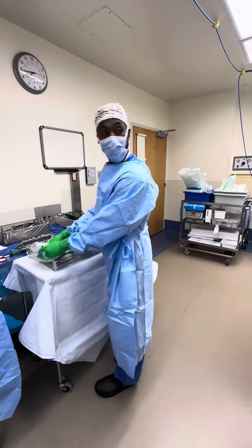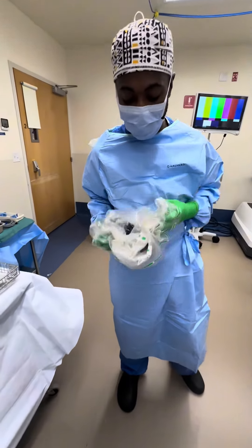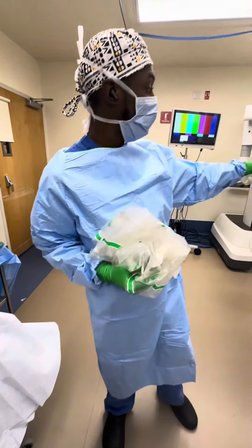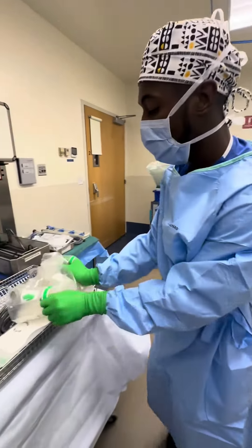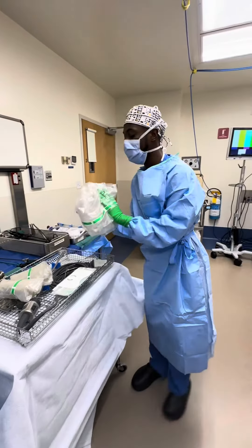Still hold on to it, and you can see that there's a little hole there where you can slide the drape over top of the arm. I put my hand back in the pocket, get a feel for where that hole is, and take this over.